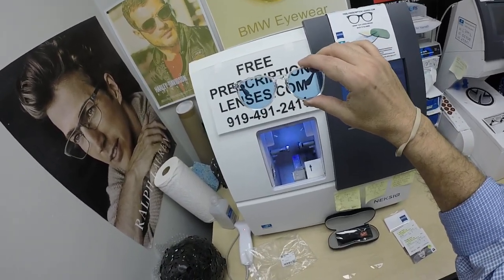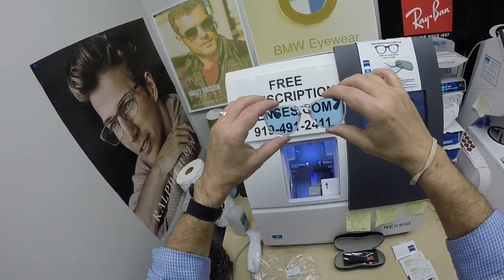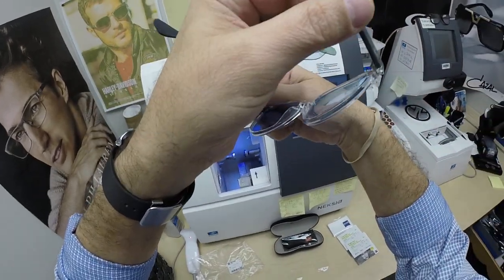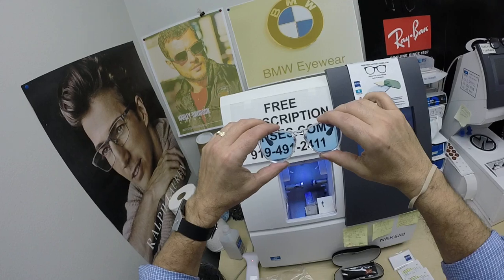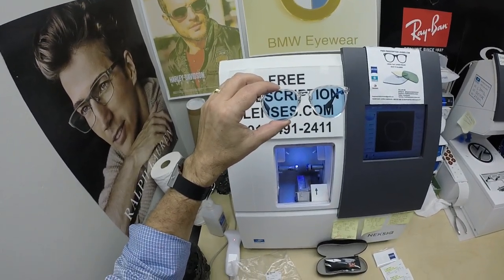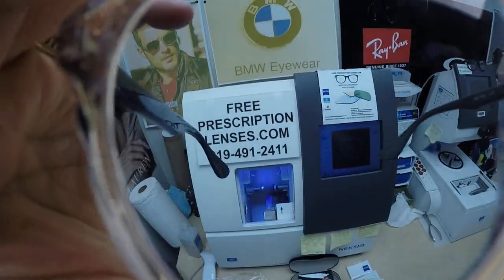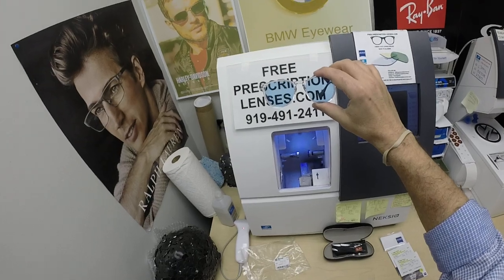So I did these in plastic. Anyone else who wants this — if you have a very strong prescription, I might be able to do it in high index. The normal free material is polycarbonate, which is 40% thinner and lighter than regular plastic and virtually unbreakable. With certain powers it may end up a little thicker than polycarbonate, but these turned out great because they are non-prescription. He got the Zeiss Photofusion Blue lenses with an added 45% Johnny Depp blue tint, which brings it down to about 35 to 40%. I can do it lighter or darker. Blue is really, really light — if I hold that up you can barely see anything. It's just very light on the eyes, mostly cosmetic. You'll be able to drive with these on at night at this 40% without any problems.